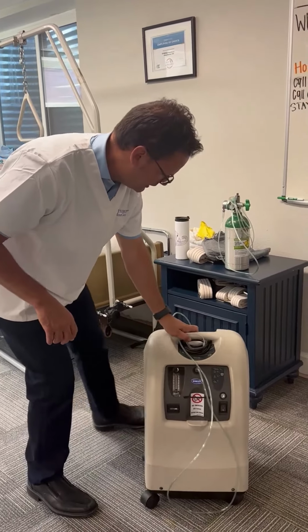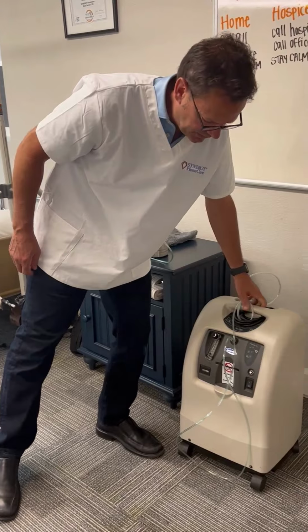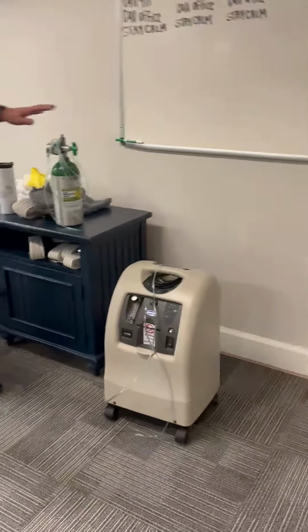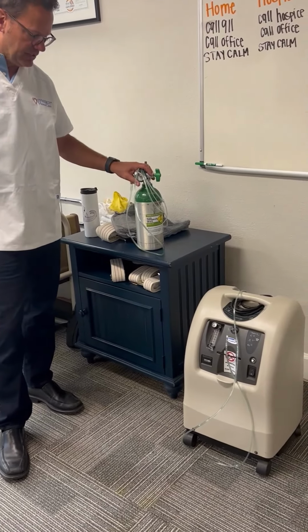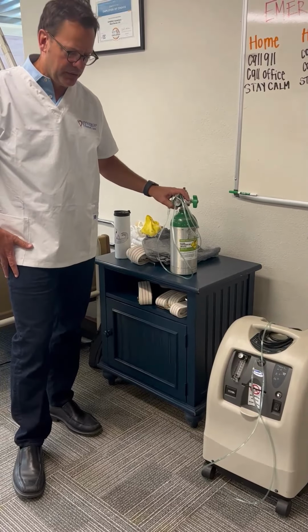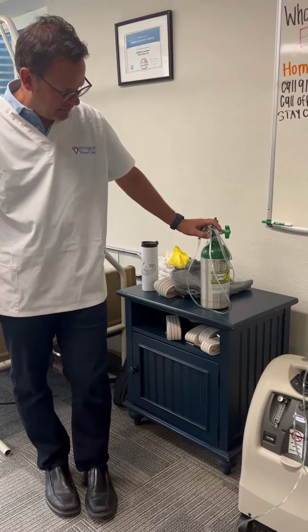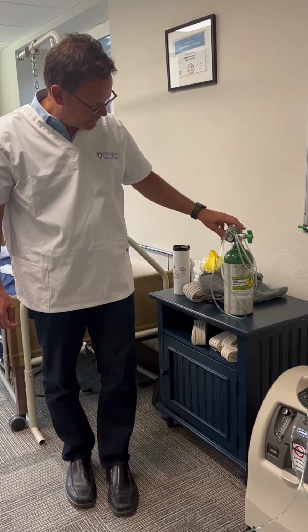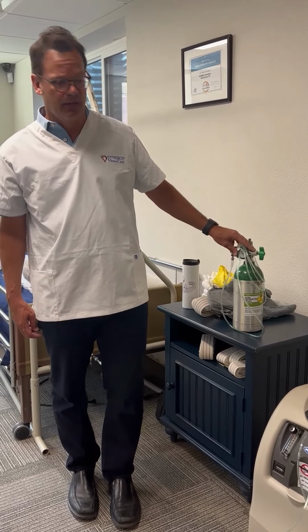The other thing is this would be a device in the home. It's a concentrator, and it is creating oxygen through the day. This would be a possible tank that could be used, a portable tank that we could, if we were possibly leaving the home and need to have oxygen in the car as we transport, a device like this would be used and allow them to be getting oxygen while they are away from the home.